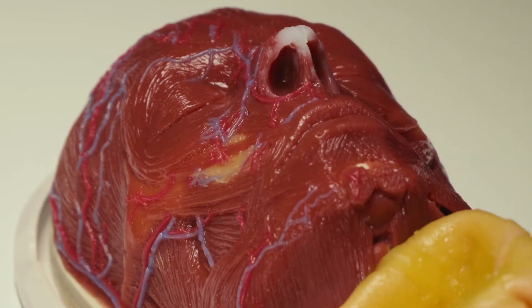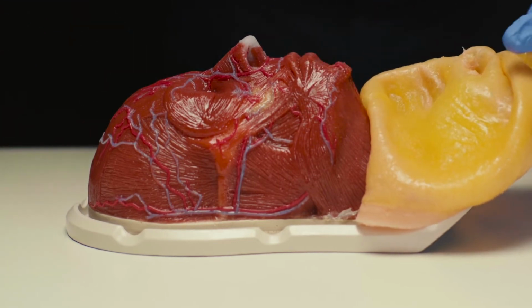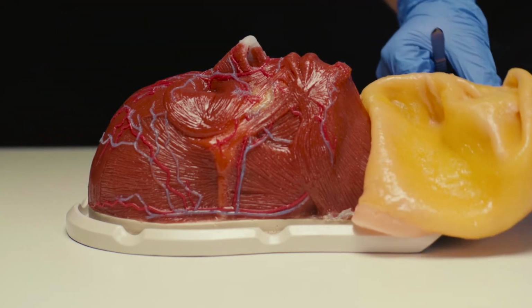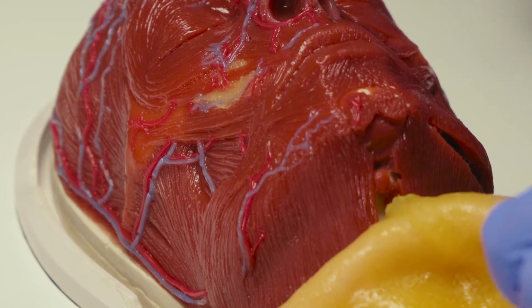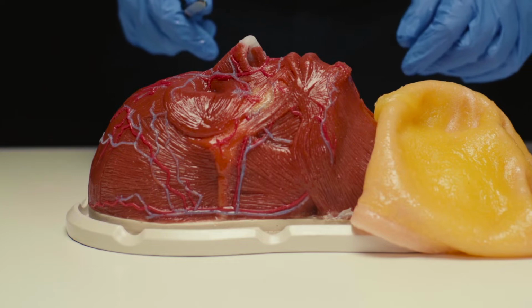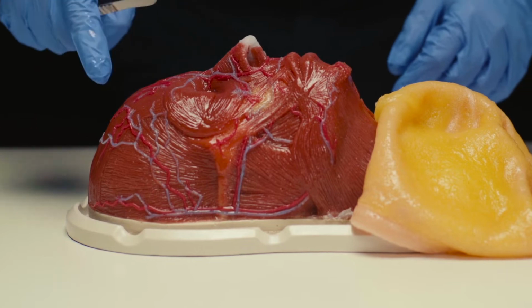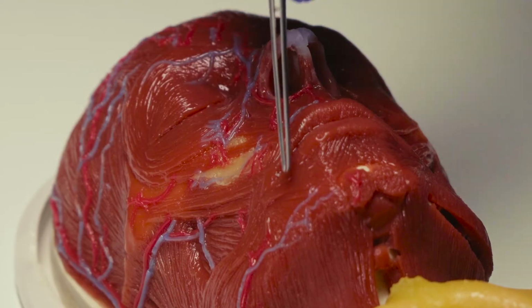When you pull it up, the second layer is revealed. That is, the superficial fat, which is thick and deeply yellow. The thickness in every part of the face imitates what happens in a human face. Under the second layer, you can see the muscular layer.